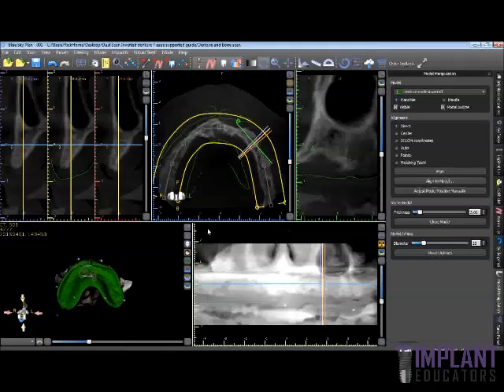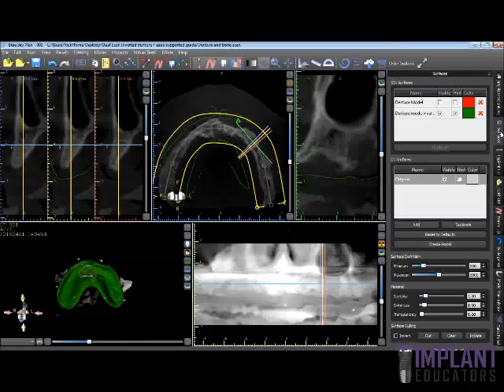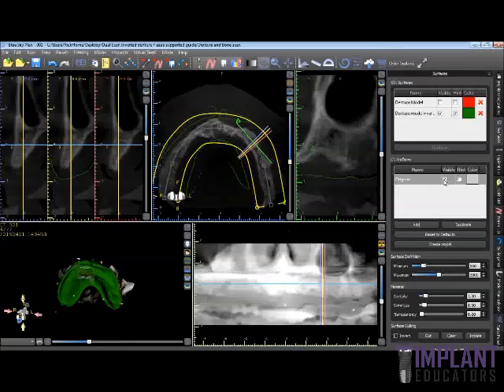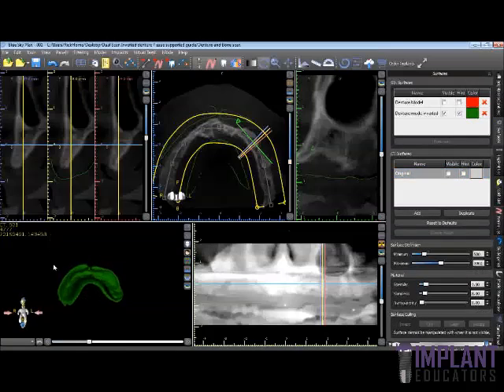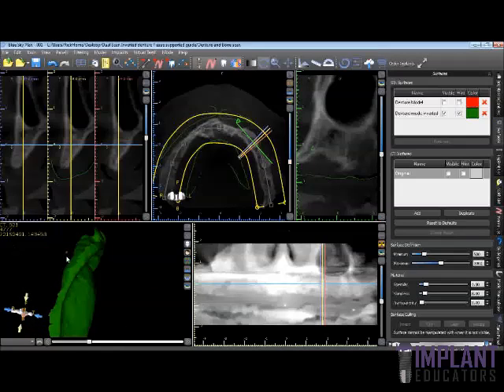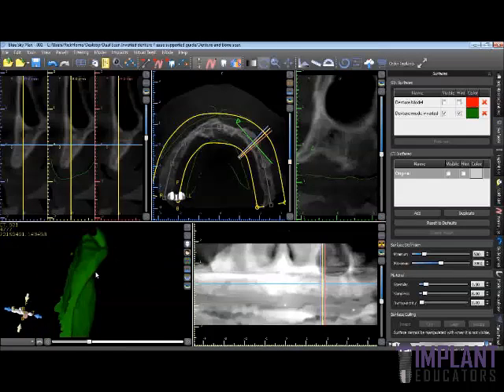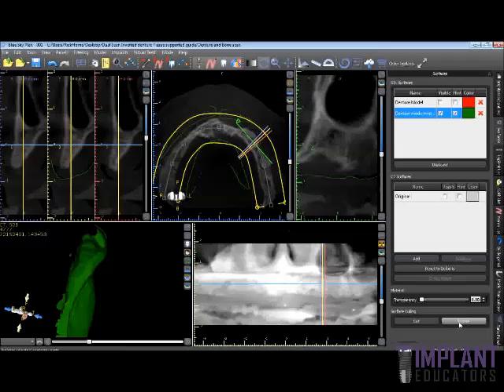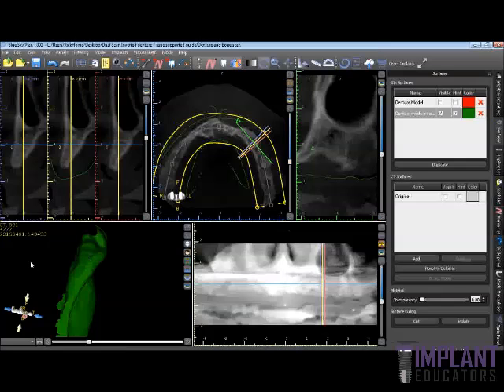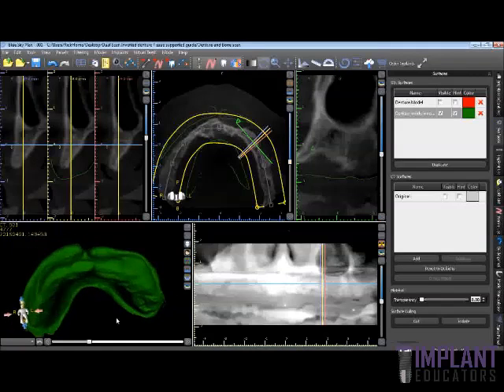If we click on our Surfaces tab, we can see that the denture is still there — we're not going to use that model. We can go ahead and get rid of the original CBCT image. You can see that extra data point that we brought in from MeshMixer software. If we click on that surface, you can click the Isolate tool, click on the main model, and it gets rid of any extra data points or scatter that you might have brought in. This looks like a pretty good model on which to make our surgical guide.